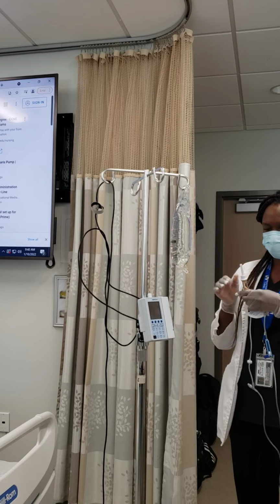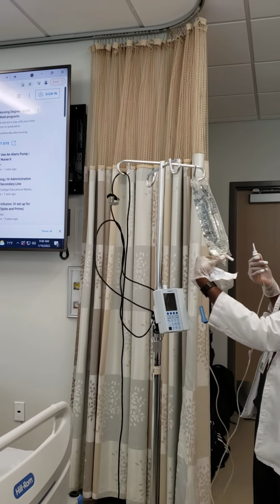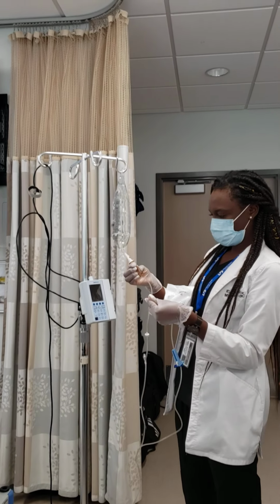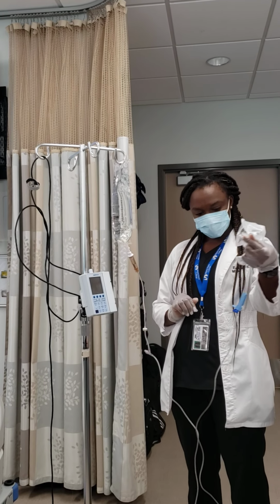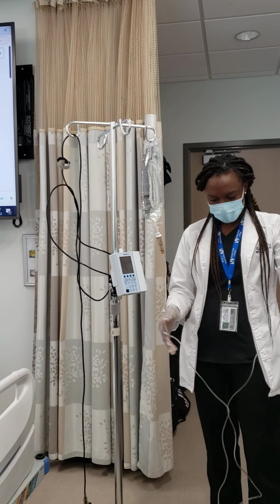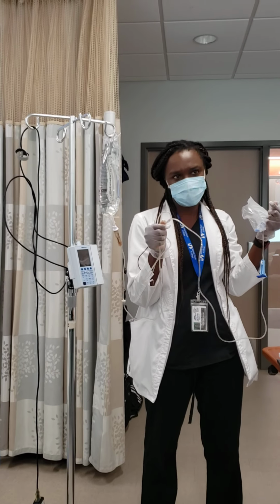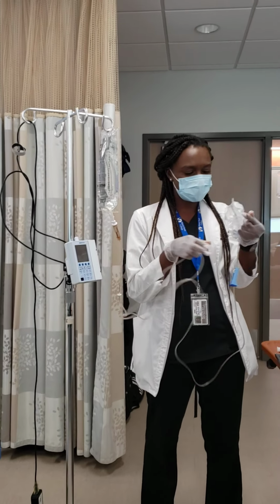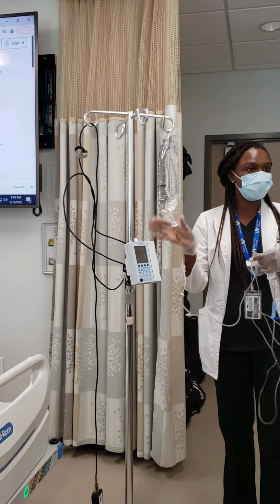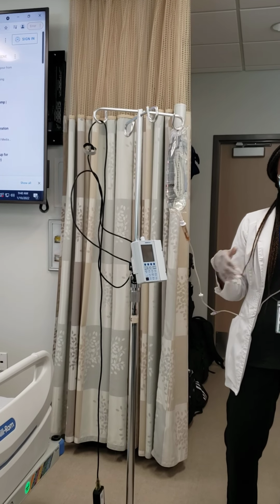So I'll leave it like that. I touch it. All you do is take this part out, right? You hold it like this, and then you spike it. As you see, I did it on purpose so you can see. You didn't clamp. Exactly. If you don't clamp it, what's gonna happen? You're gonna build air. Look how air bubbles are in here, right? And you're losing medication or fluids. So first, before you actually spike it, you have to clamp it. Okay, it gives you more control as well.